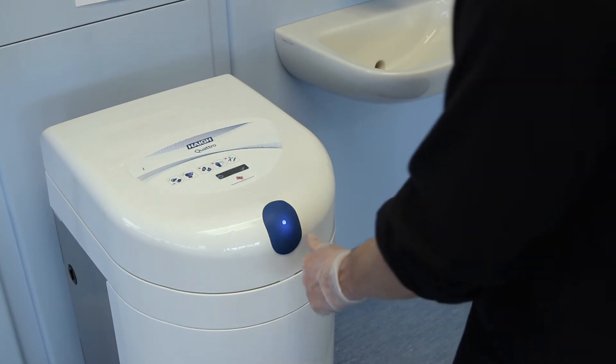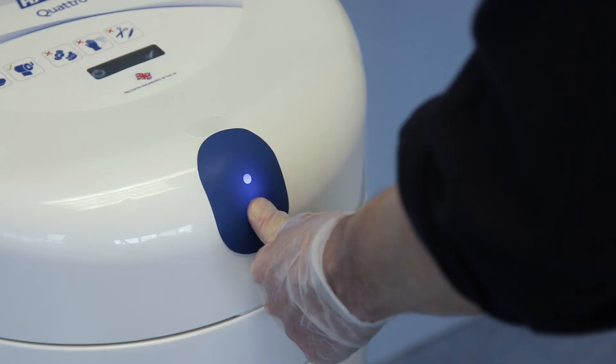To turn it off manually, press below the blue light for 5 seconds. The blue light will turn to green.